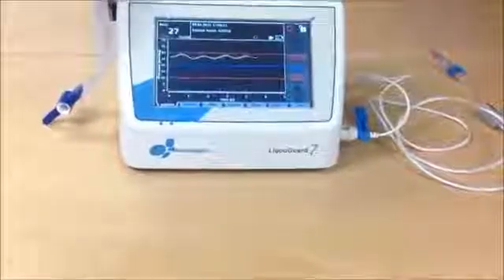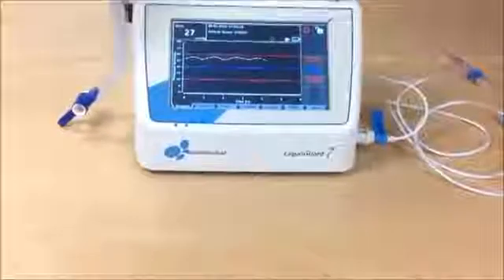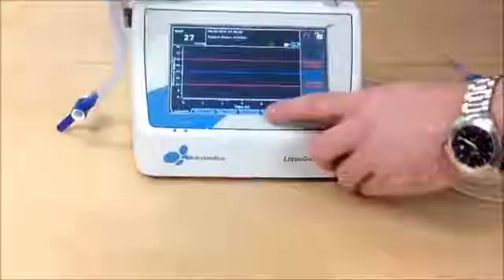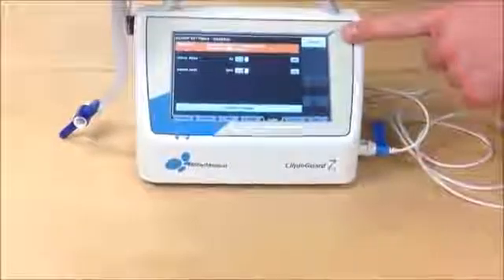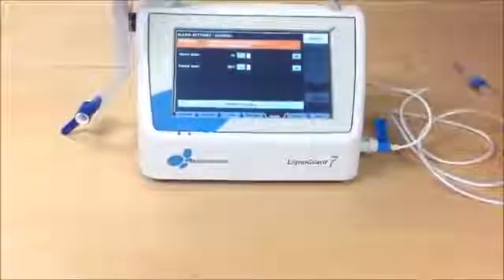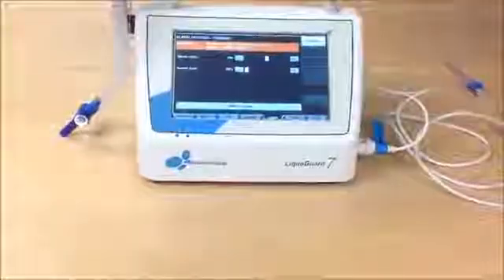Now, in our example, the high pressure alarm came pretty fast. This can be adjusted in the menu alarm general. You see the alarm delay. It's very small, only 5 seconds. 20 seconds is the default setting.